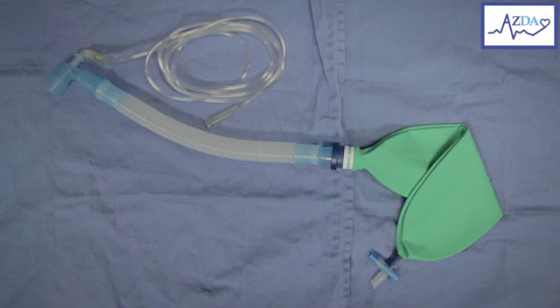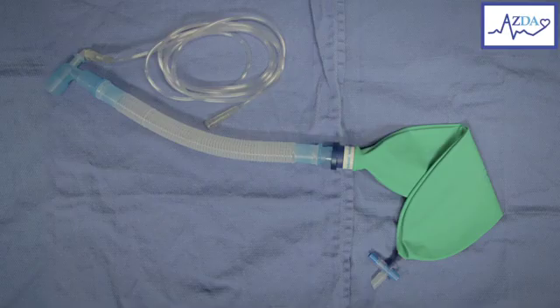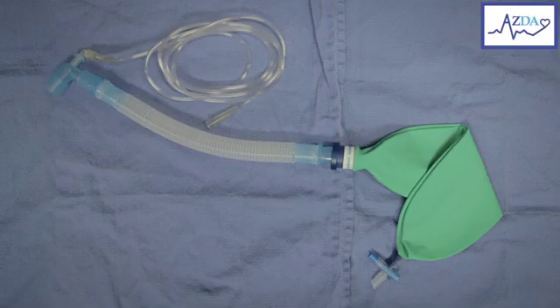What you see in the first image is the Jackson-Rees circuit taken directly out of its package. The circuit is in its original form and can be used, but there are several things missing — like the capnography — and the length of the circuit is very short, which adds a dimension of difficulty when the anesthesiologist wants to give a breath to the patient.